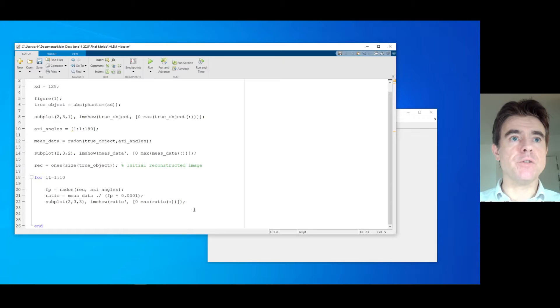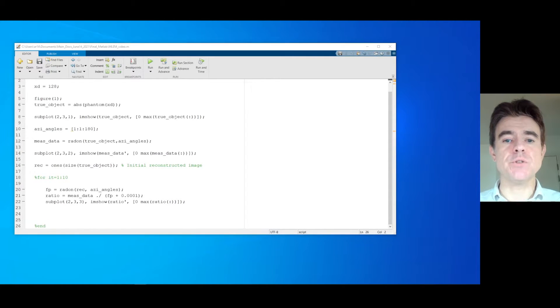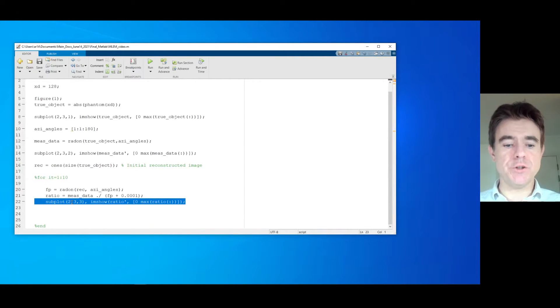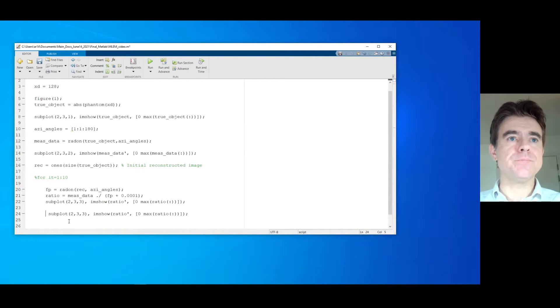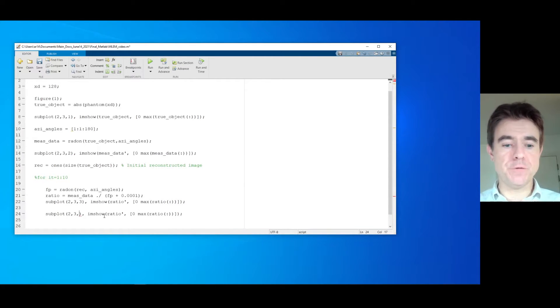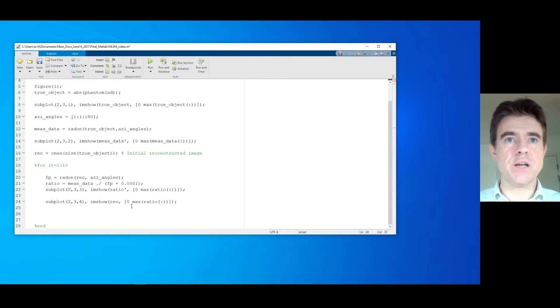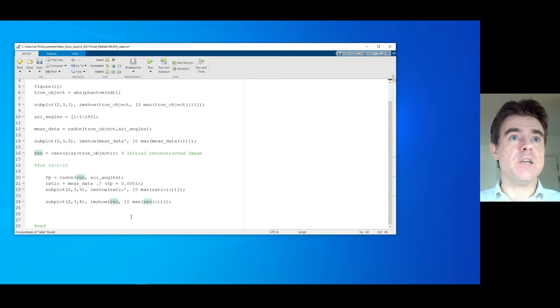Let's take out the iterative loop for the moment and check that this ratio is running as we'd expect. This is looking quite good — we've got a ratio sinogram in the top right corner. It might also be good to display the reconstructed image, so we can put that in the bottom left box — position four. We're going to display the reconstructed image as it is in MATLAB XY. Initially it's just going to be a uniform image.